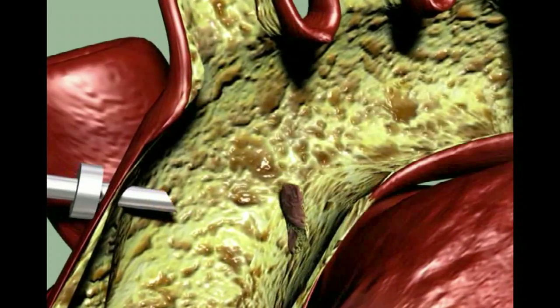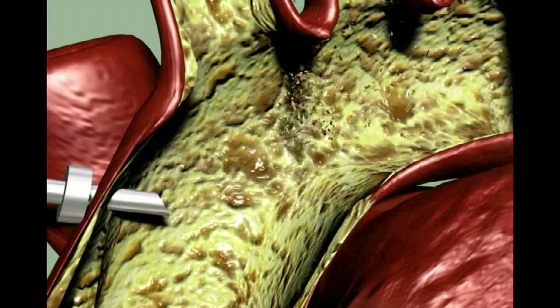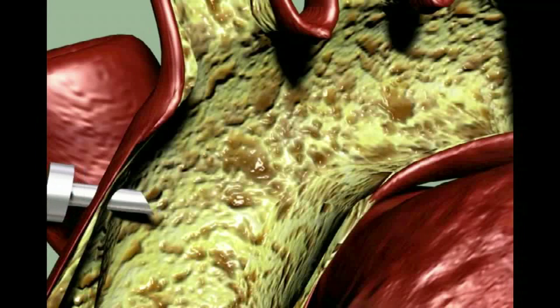For example, plaques can be detached by the heart-lung machine which has a sandblasting effect on the inner wall of the artery.